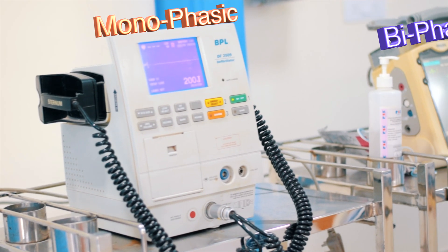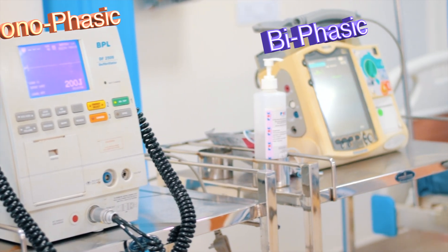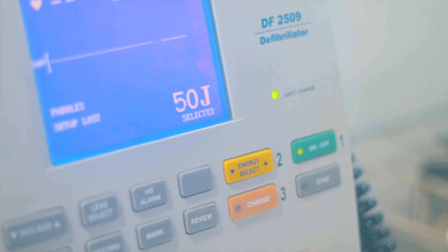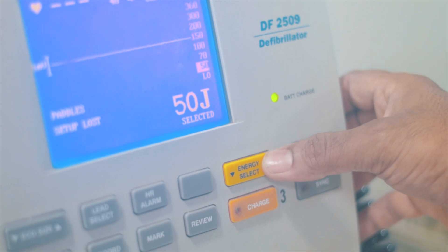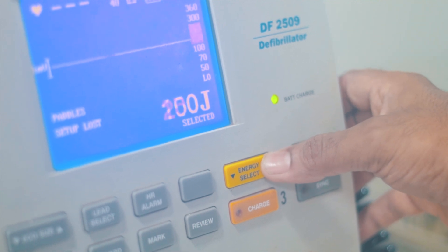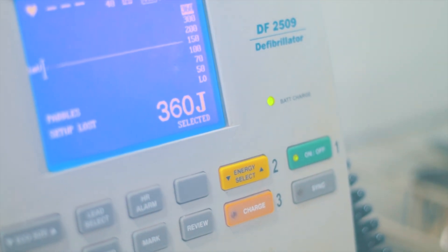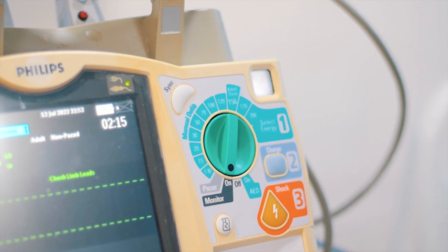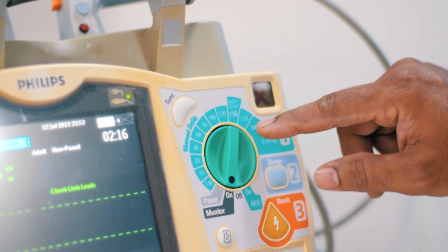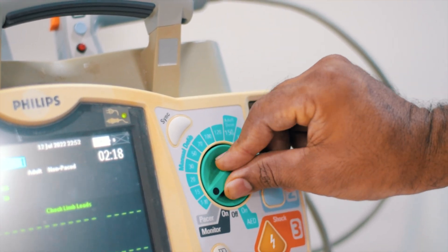There are two types of manual defibrillator: monophasic and biphasic. If you're confused as to which one, take a look at the maximum energy level on the machine. If it says 360 joules, it's a monophasic. And if it says 200 or 270 joules, it's biphasic.